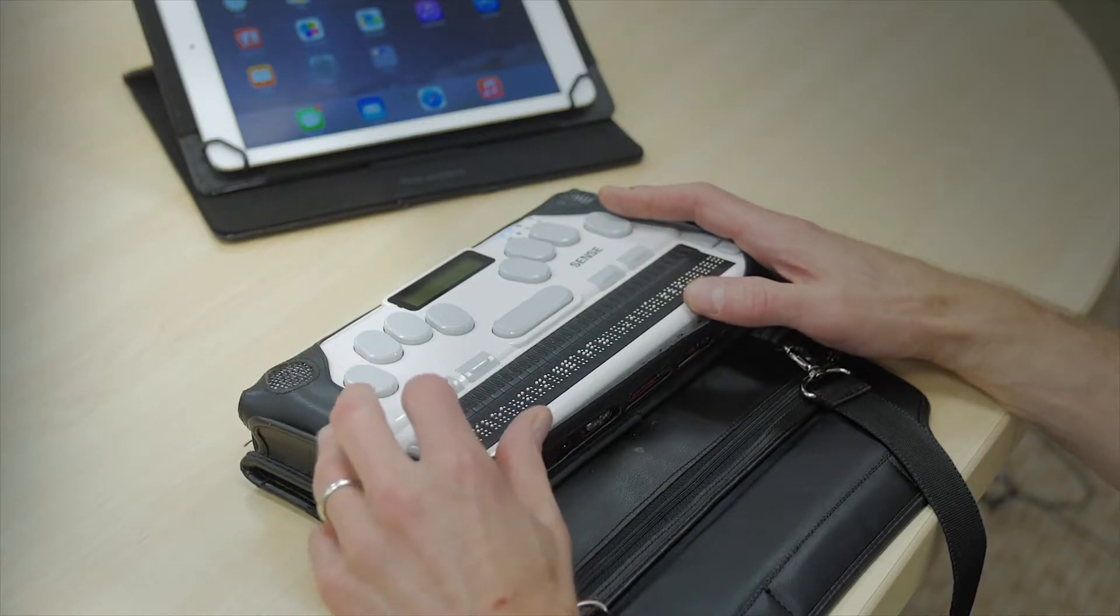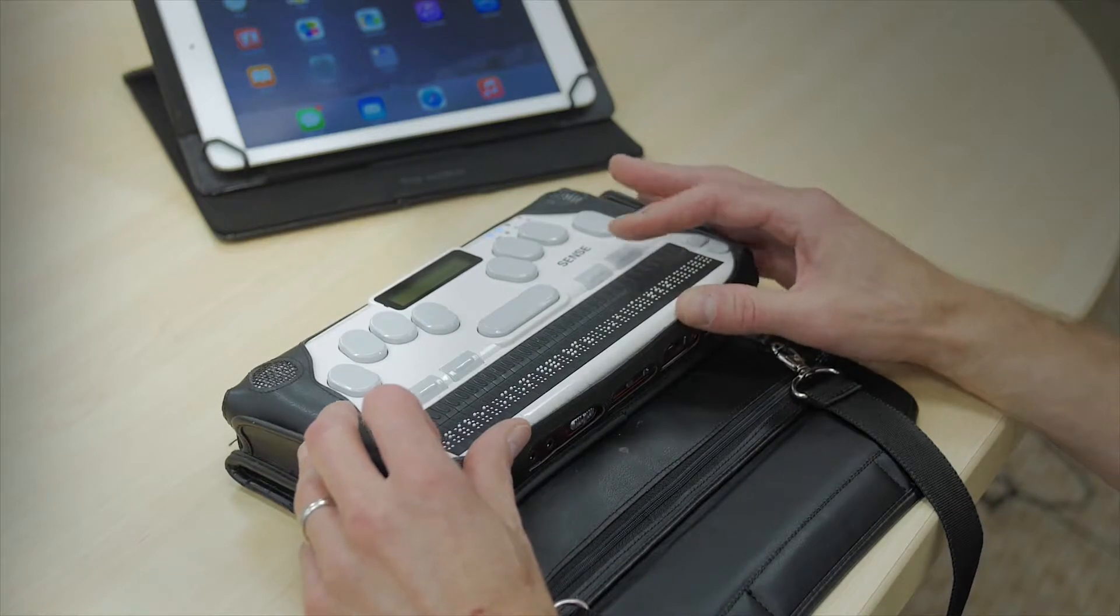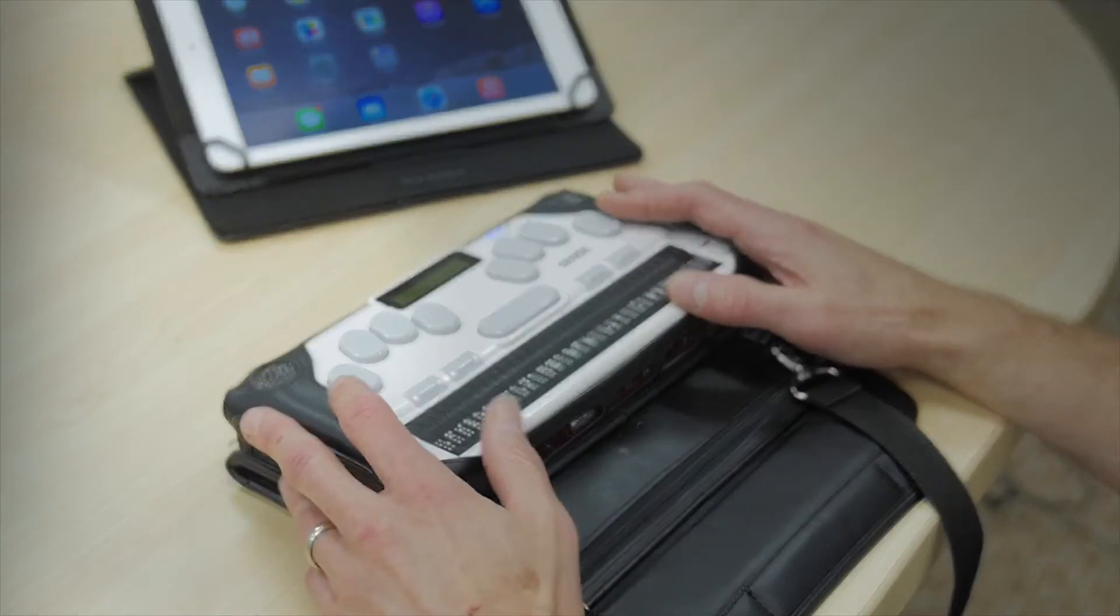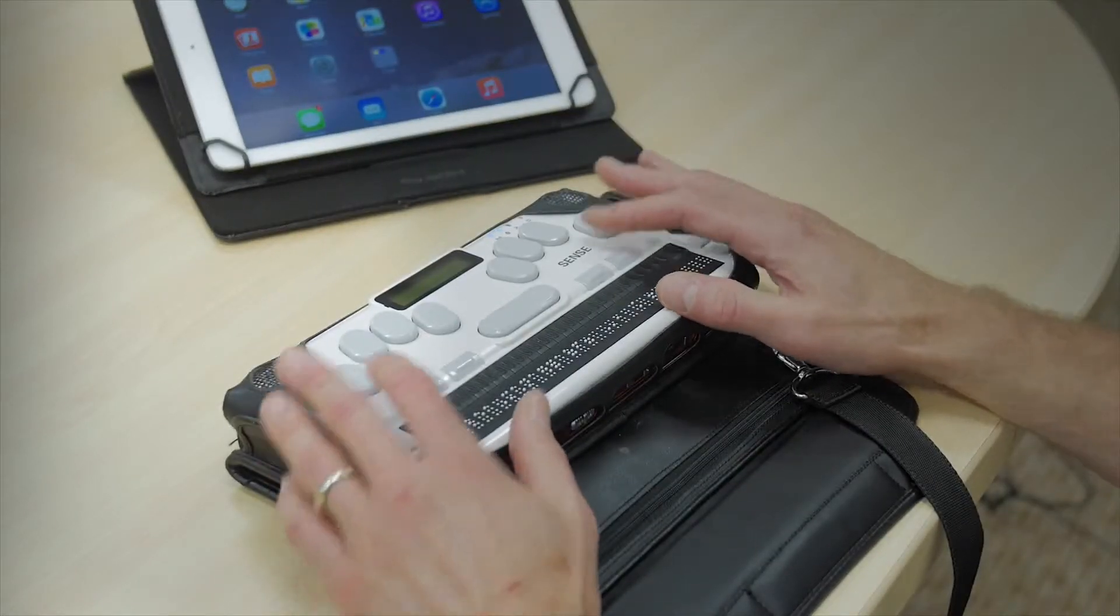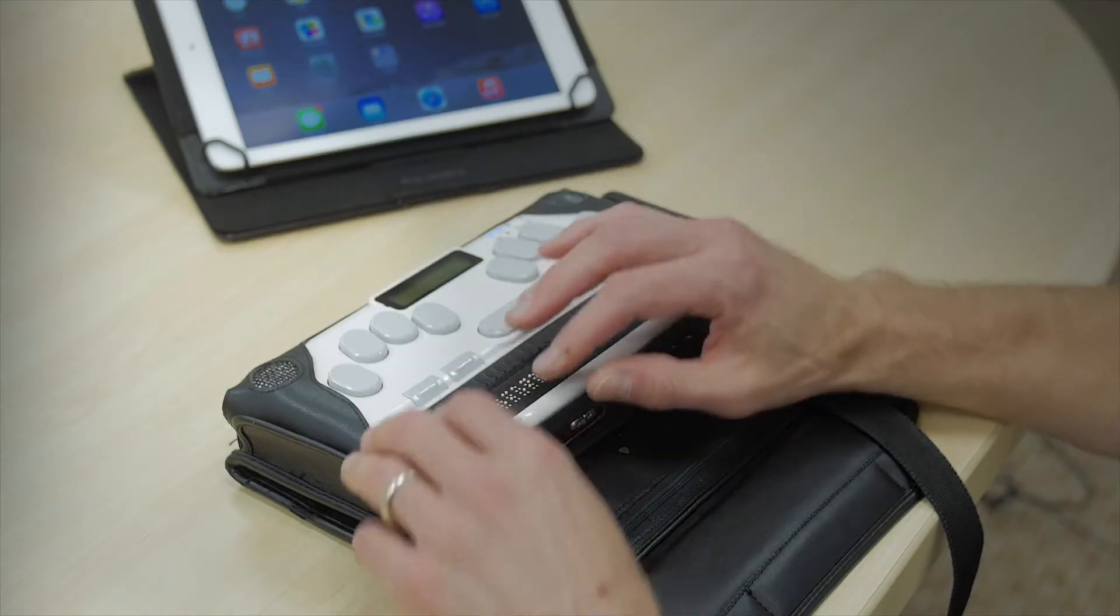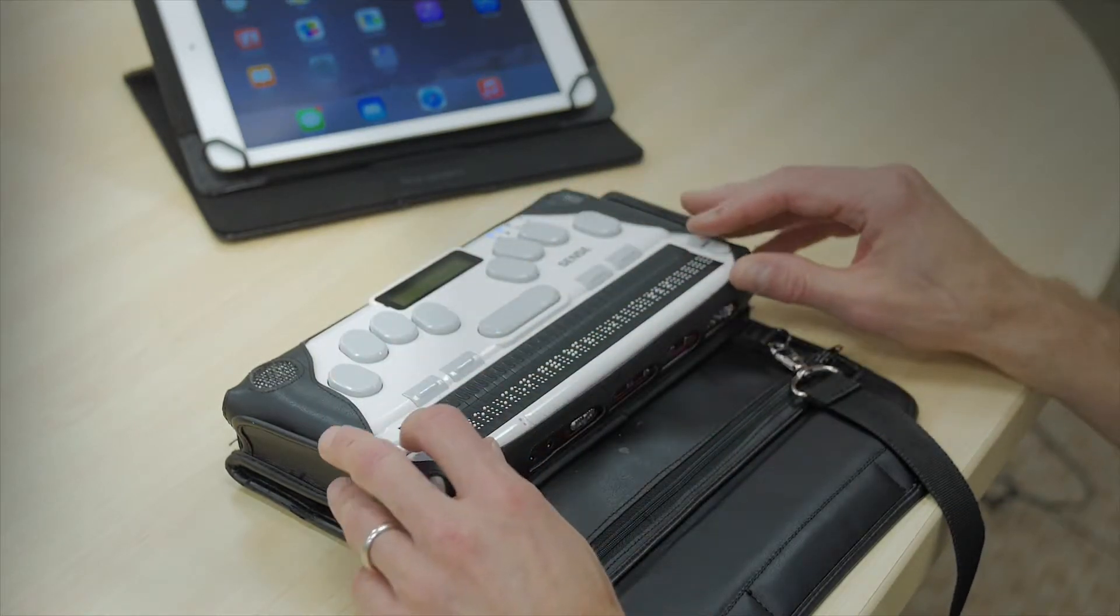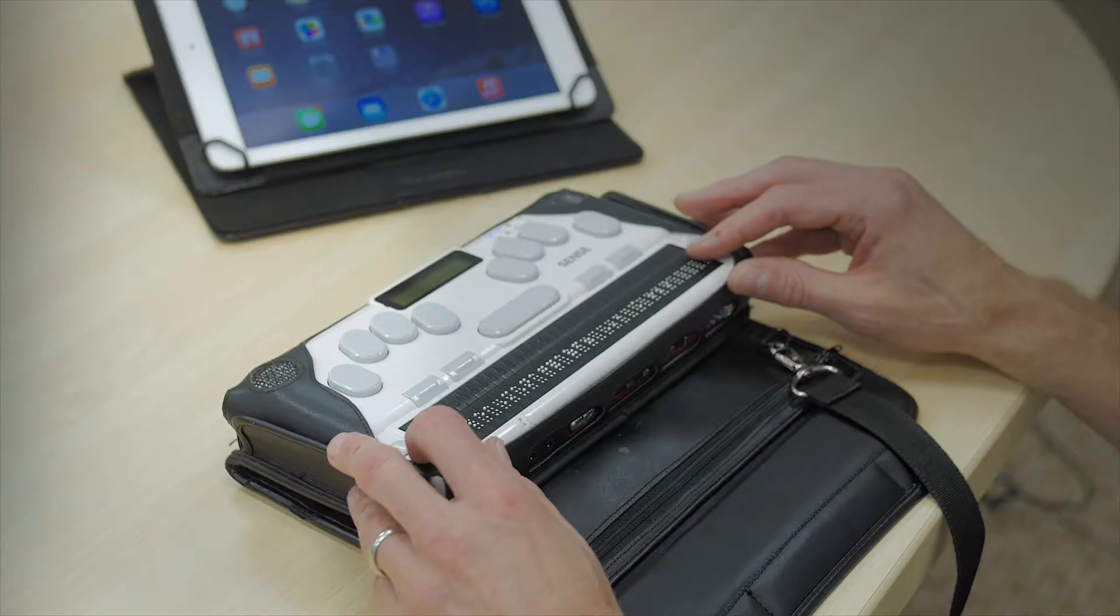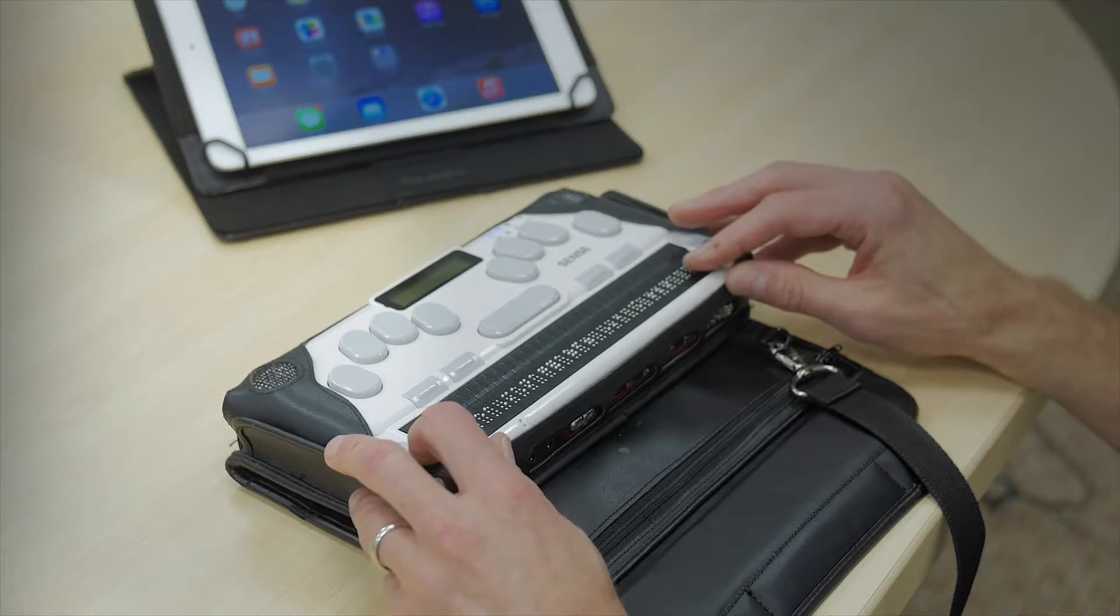We want to go to the utilities menu because the utilities menu is where the terminal for screen reader is located. I could use the shortcut U but instead I'm going to use the scroll buttons on the side of the Braille display to go through the menus to get to the utilities menu.